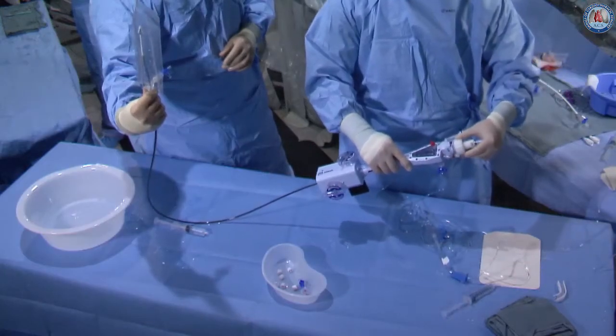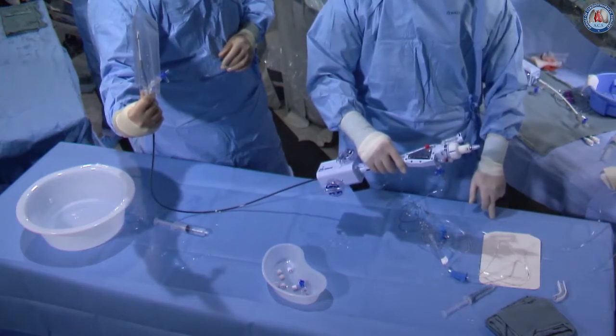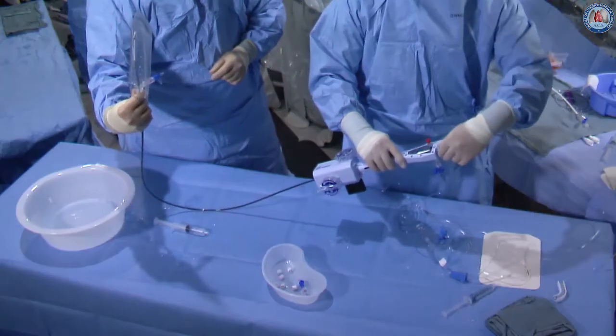The clip is re-locked and we're going to come down to 20. Now with the grippers down and the clip locked, we're going to test that it's not going to open once it's closed down to 20. I'm going to try to go in the open direction — you should see some deflection of the shaft — and the clip is not opening.